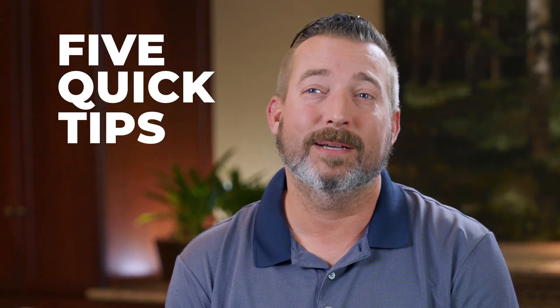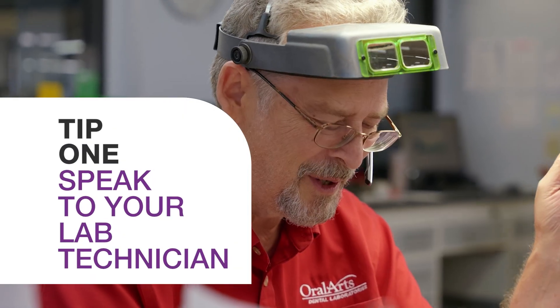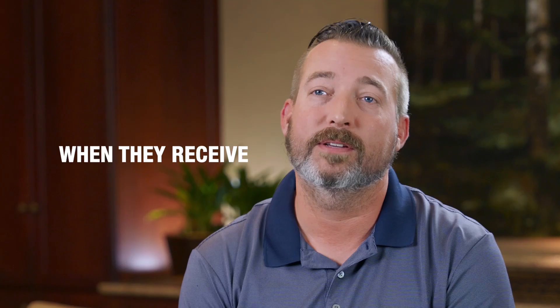Hi, I'm Ricky Kepler and today we're going to be talking about five quick tips to help you with your digital implant workflow. Tip one: speak to your lab technician. That way the lines of communication are open. This is going to make sure that we follow your prescription to a T and know exactly what is expected when they receive that crown.